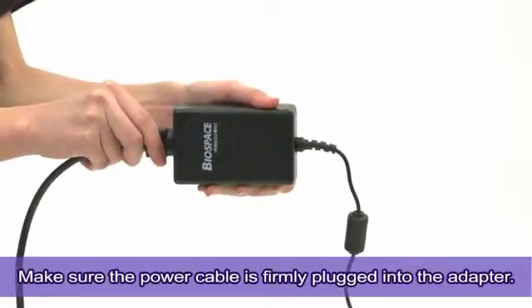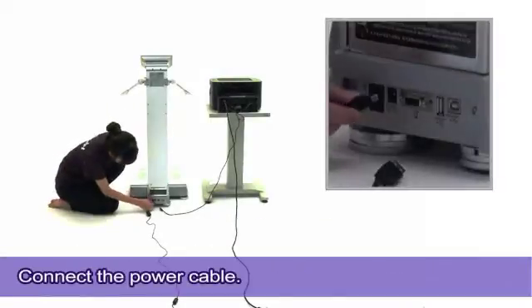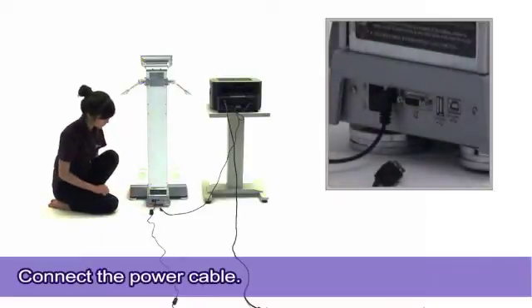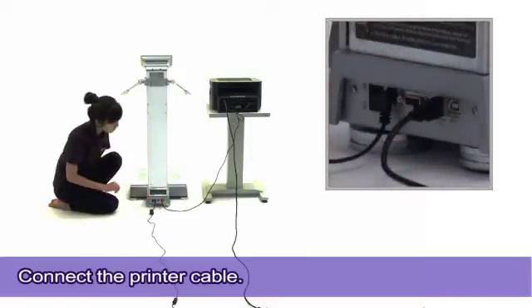Make sure the power cable is firmly plugged into the adapter. Connect the power cable into the rear panel of the InBody 370. Also, connect the printer cable into the rear panel of the InBody 370.